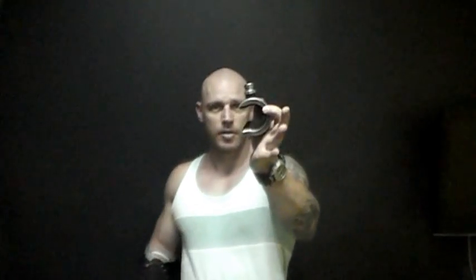What you're going to need is some attachments — my prosthetist makes all of this for me, besides the Ossur liner which you can get directly from Ossur. The attachment I have is a thick hook for doing pulling exercises that basically just snaps on. You can throw it over a bar, around a bar, hook it onto cables — pretty much any machine where you're pulling, this is what it's for.